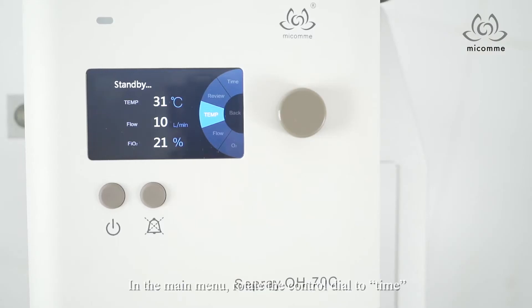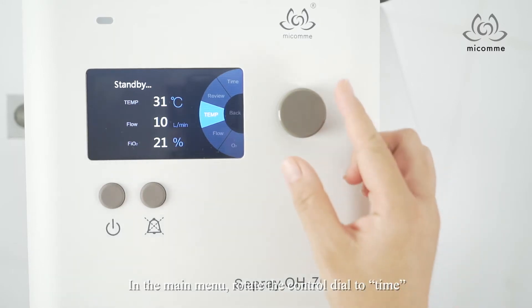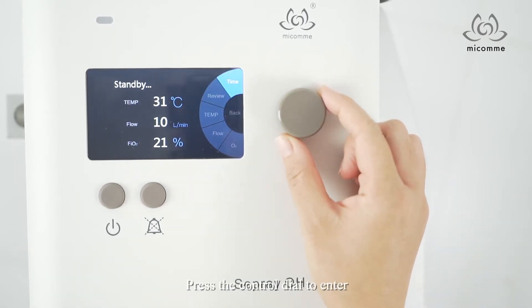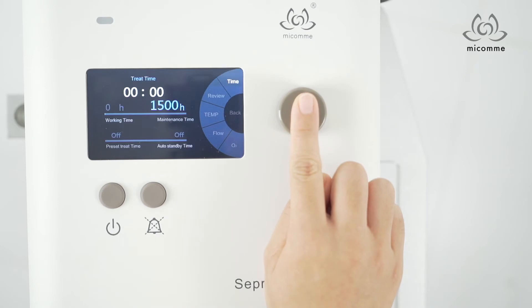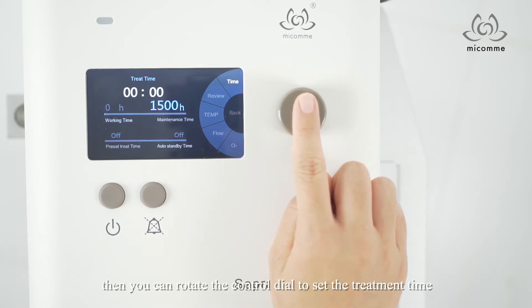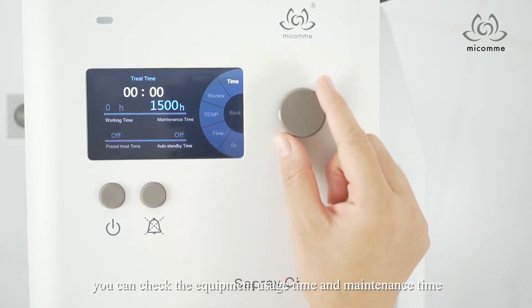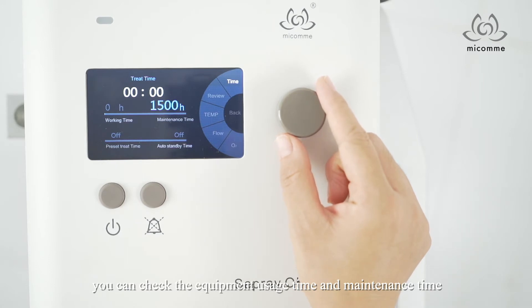In the main menu, rotate the knob to time and press the knob to enter. Then you can rotate the knob to set the treatment time. You can also check the equipment usage time and maintenance time.